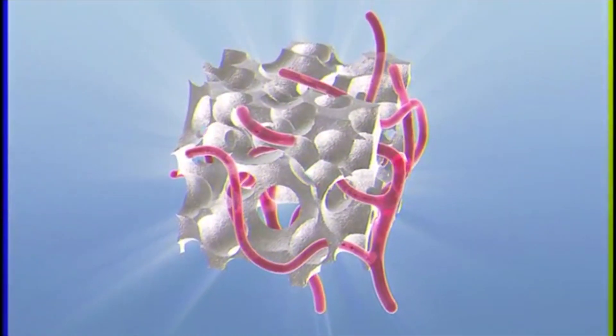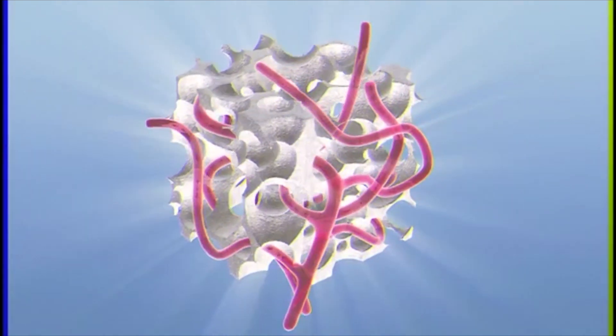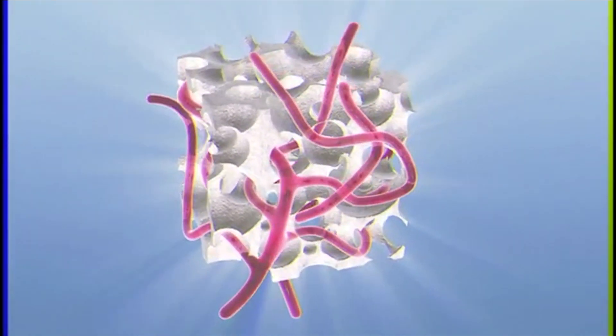This vascular development is an essential component of osteogenesis, driving an increase in bone volume and leading to the acceleration of bone formation.